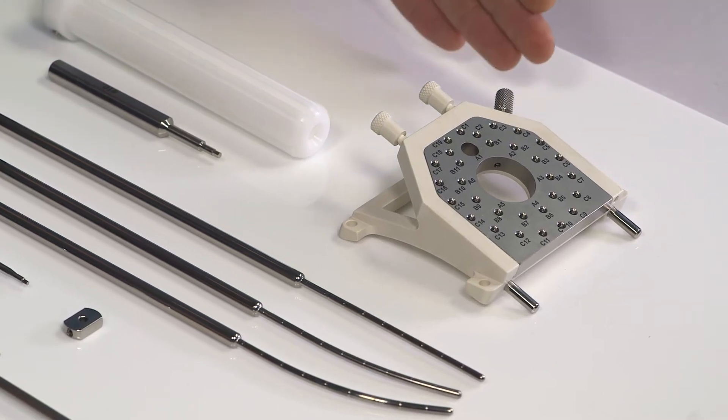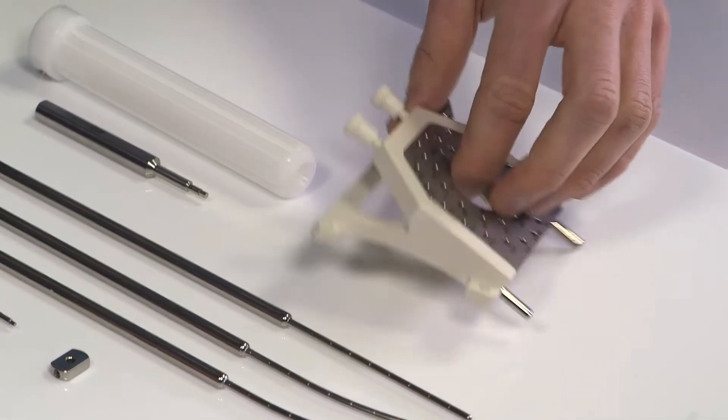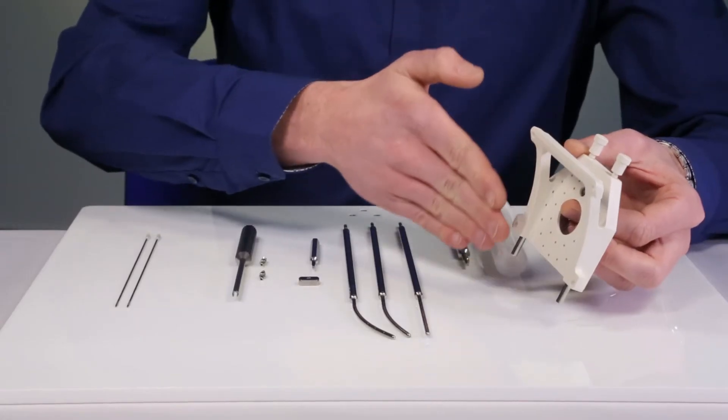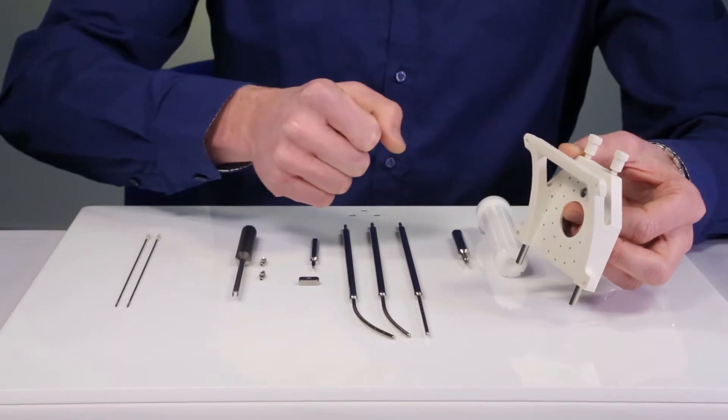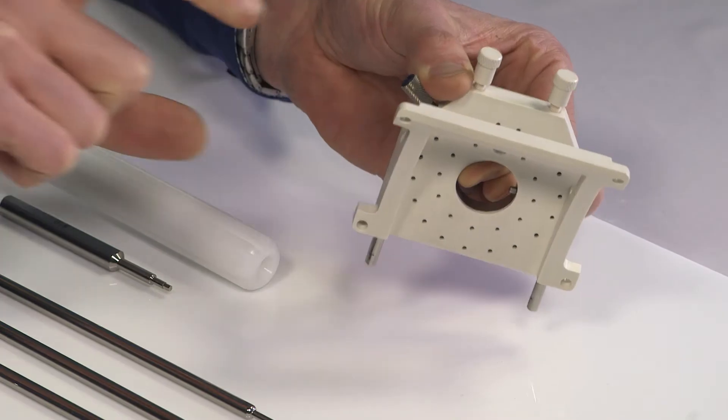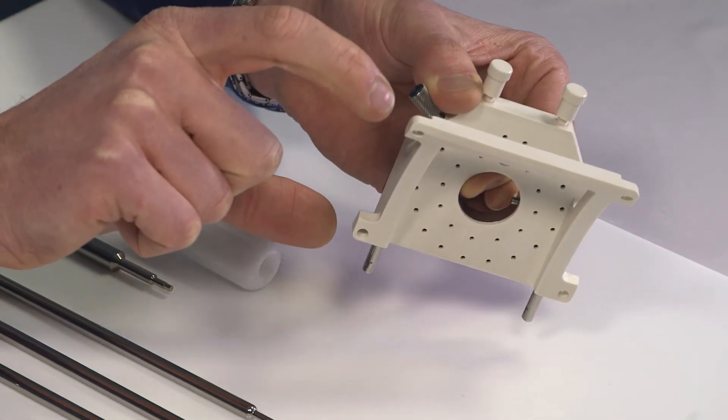The template set consists of the following parts. The MIG template features a curved design that provides optimal fit to the patient's anatomy with suture holes for easy attachment.